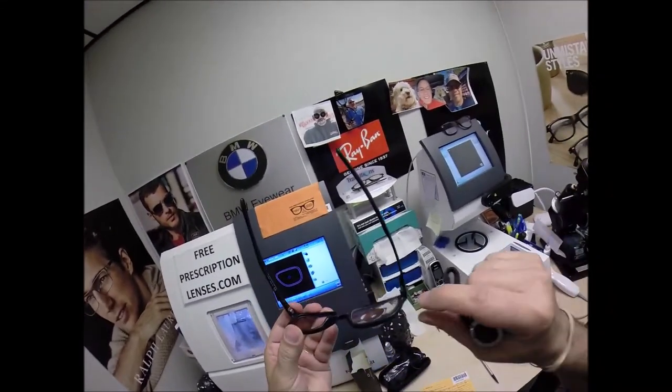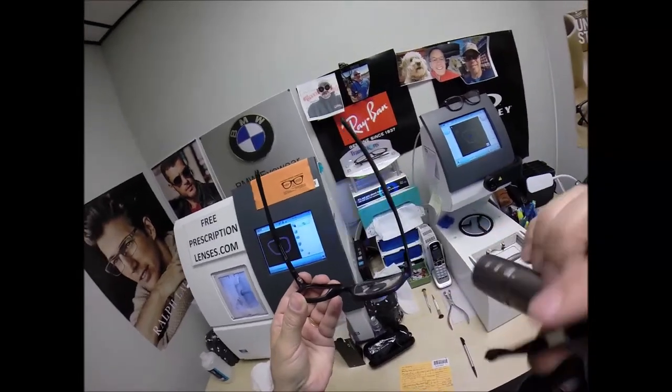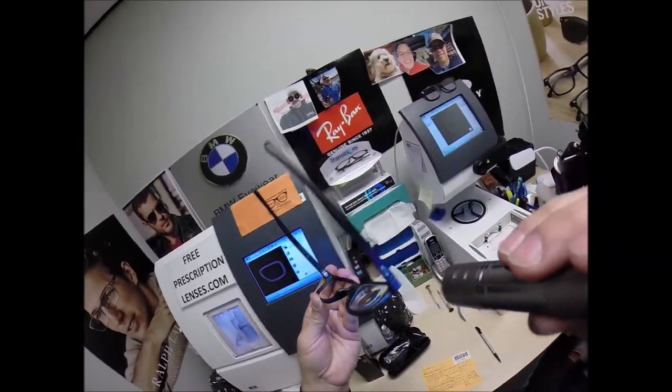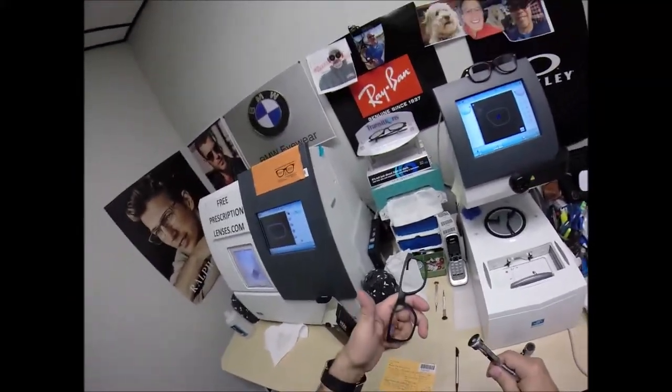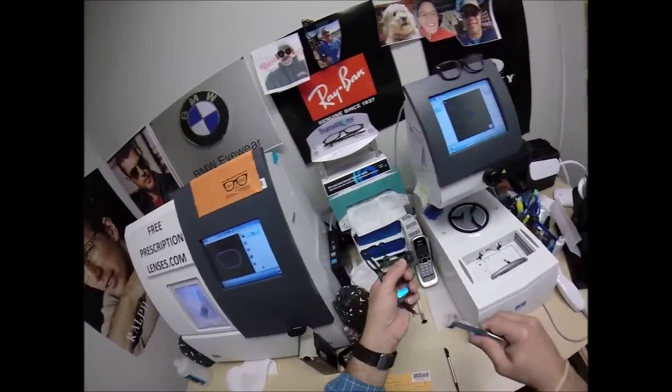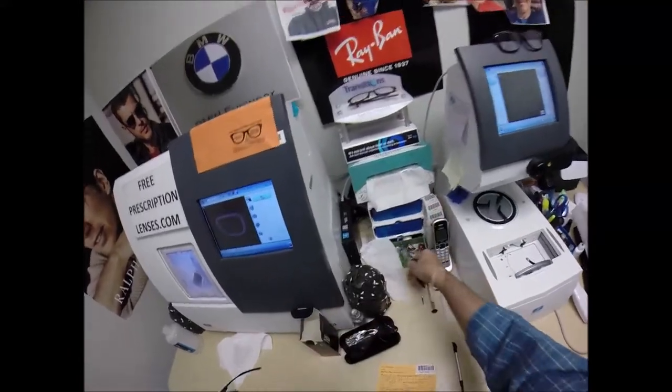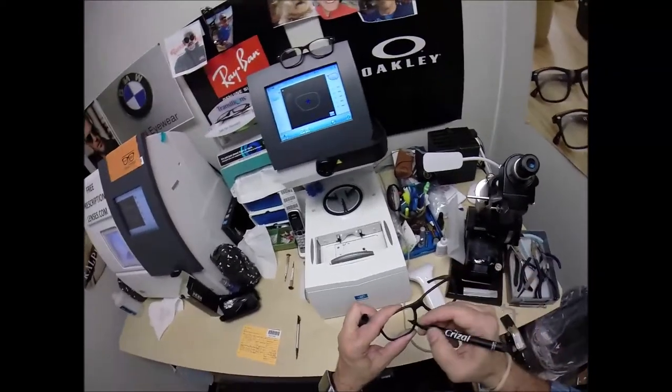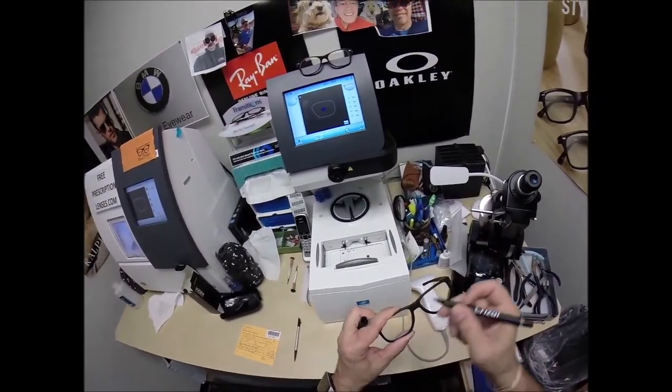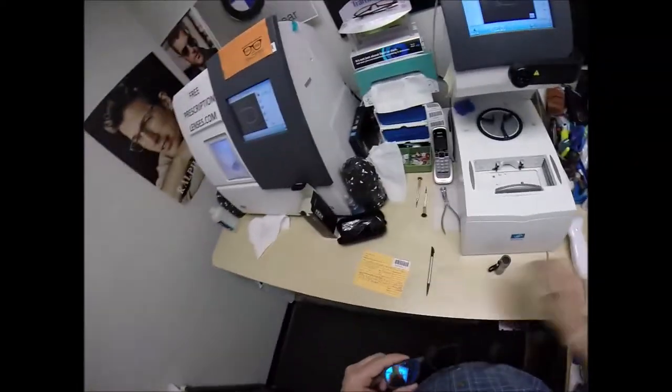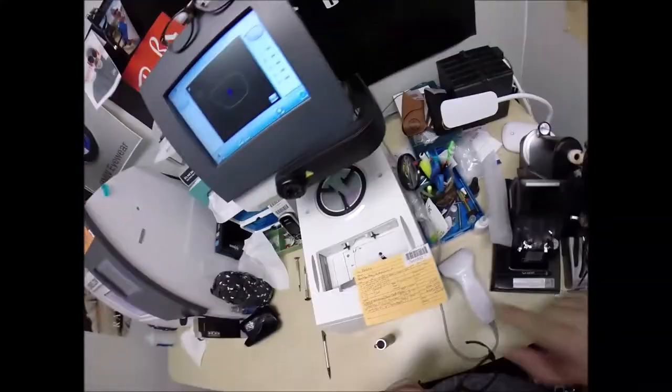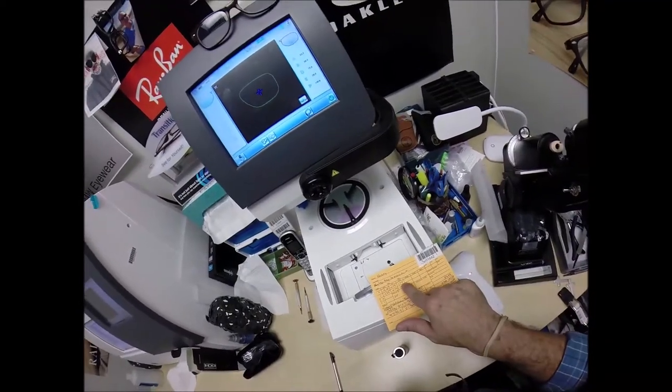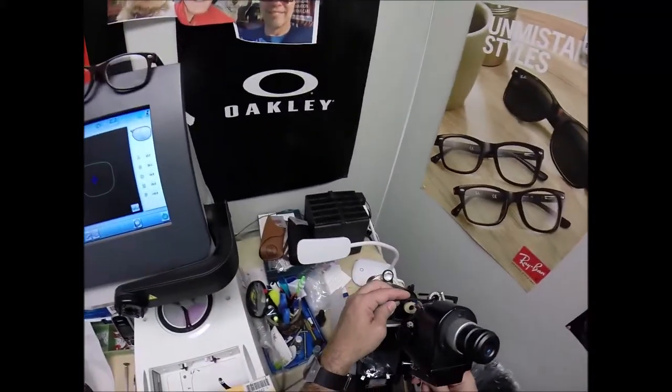Now, you're not going to have any on the left side. Your prescription is almost twice as strong on the right, and you barely have any. So let me go ahead, and that's why I use the polycarbonate lenses, because I can get them thinner. Pull the sticker away. Use my hand-approved drying method. Throw that in there. Add that to my sticker collection. I see the PD dot on there lightly. I'm going to darken that. Come back down here to my lensometer. I don't have to turn the axis wheel, because it's still on 175 for the left eye, which is the same for the right. Put it in over that black dot.